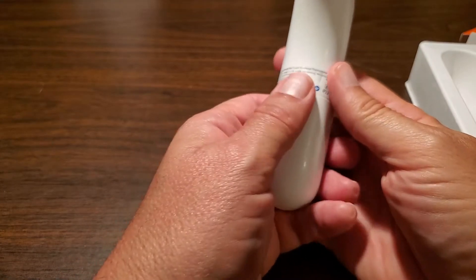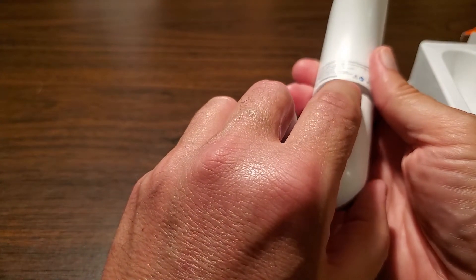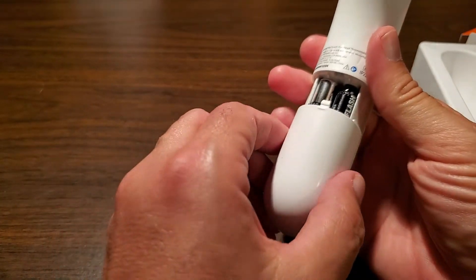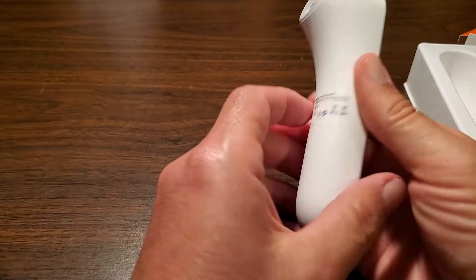To open the battery compartment you just need to push down where there's a little detent here to release the hook from inside, and then it just slides back. These are the two AAA batteries that came with it. Just slide it back on and close it like that.